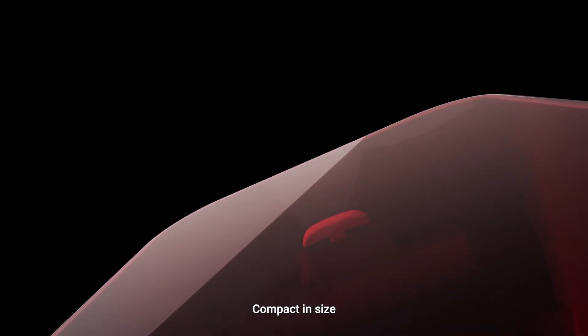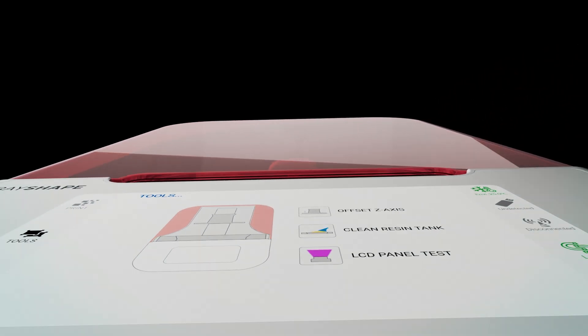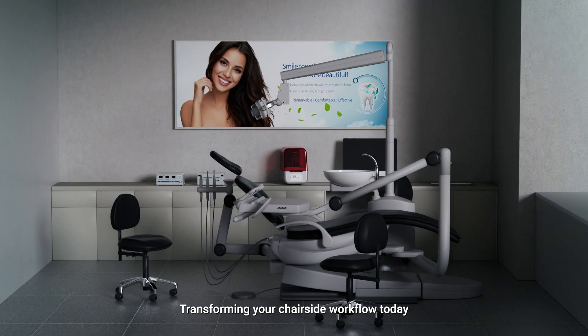Compact in size, unlimited in possibilities. Transforming your chair-side workflow today.